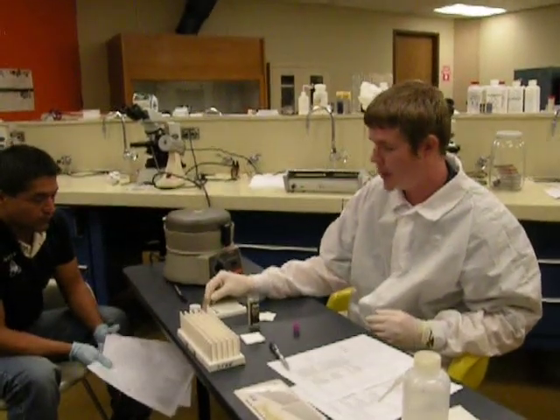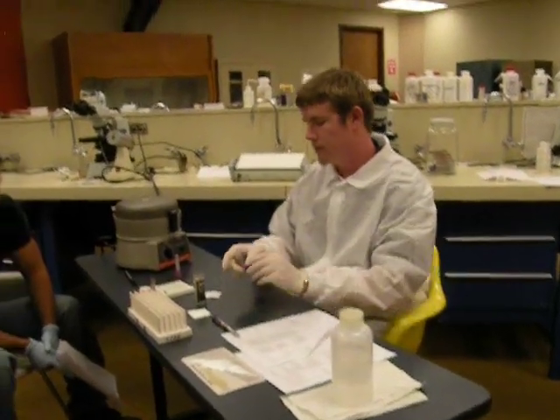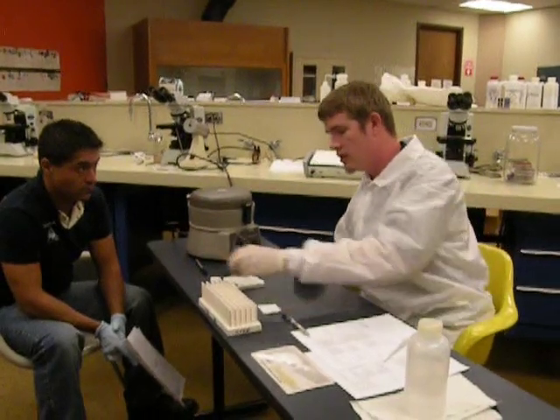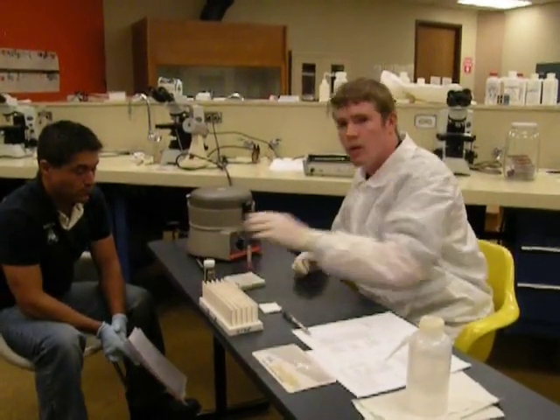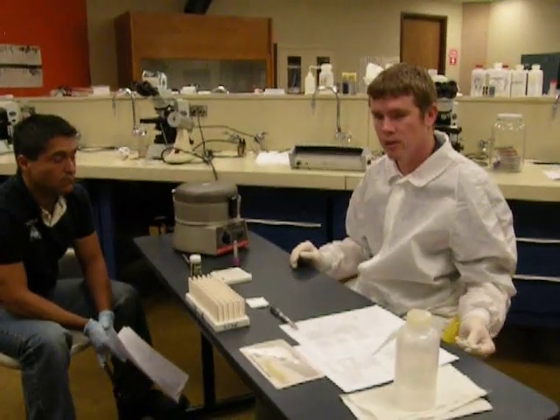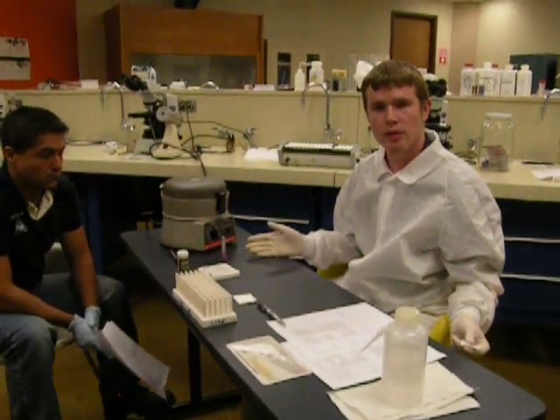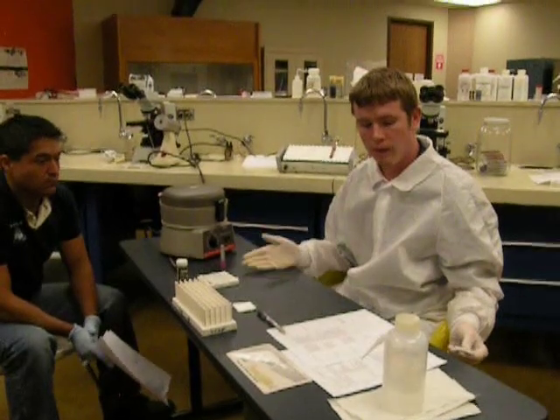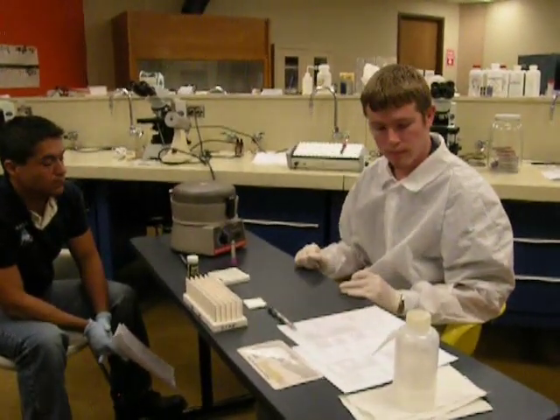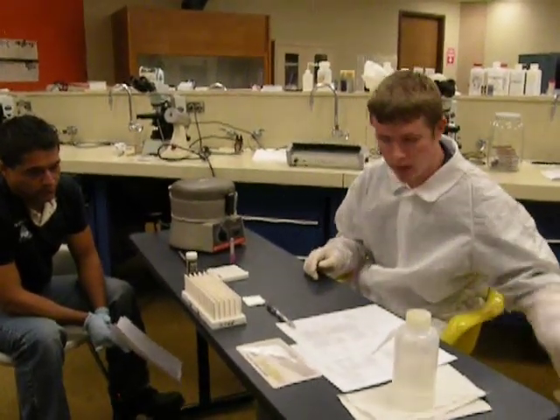After this is done, go ahead and take your tubes. Since these are plastic, we're just going to put them in the autoclave bag. We'll cap our blood and save it just in case we need to run further tests. Proceed to clean up the workstation. To sum it up: a spun hematocrit tells the percentage of red blood cells in the patient. Normal ranges are 40 to 50% in males and 36 to 44% in females. Disinfect your area, throw away your gauze, and you're done.